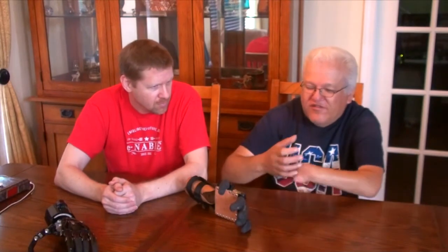Because if I have a glass right now and I grab it, it'll tip the water. I see, okay. Yeah.